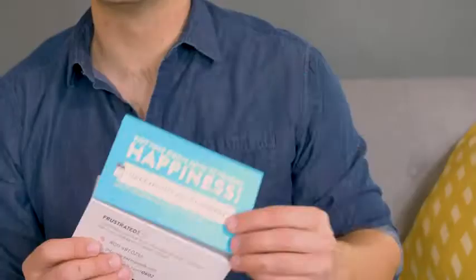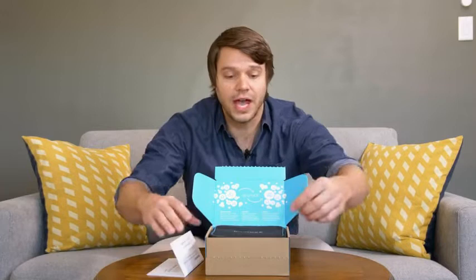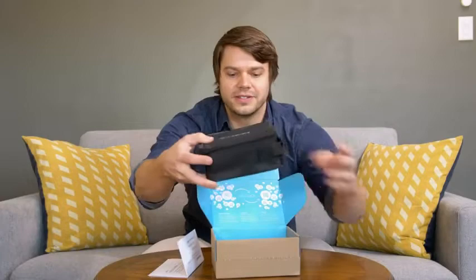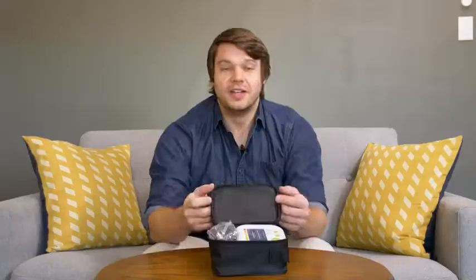Nice pop of blue there. You get some info right off the bat — a bit of information on just how to use the blood pressure monitor, and a number on there if you ever need to call us. We're here in St. Louis, Missouri to field all of your questions or comments. It's already in its carrying case, all packed up. Minimal packaging — better for the environment.